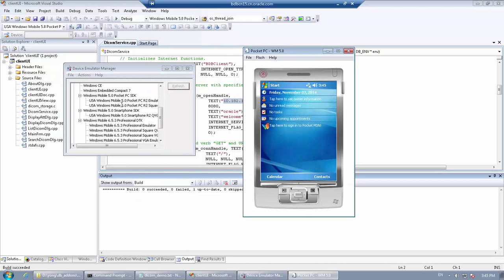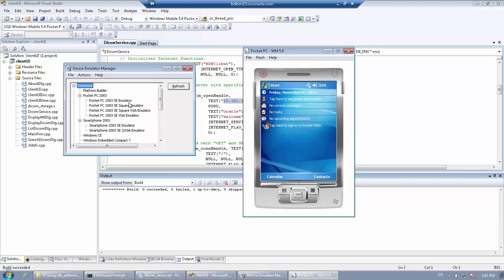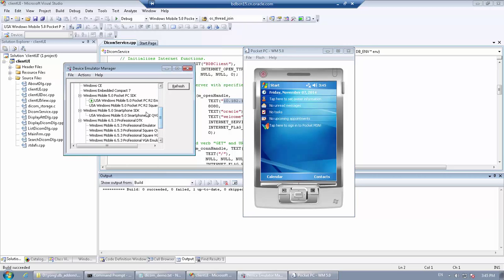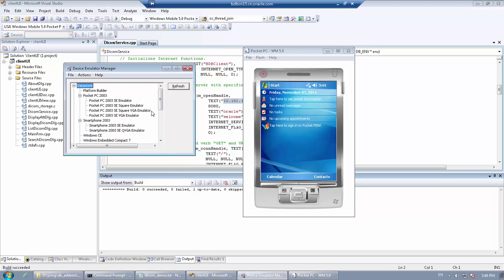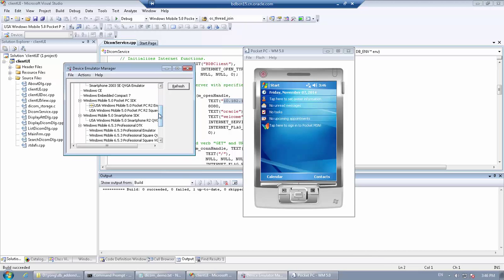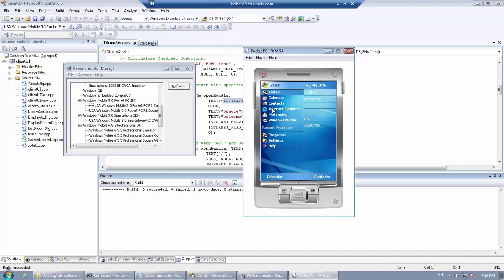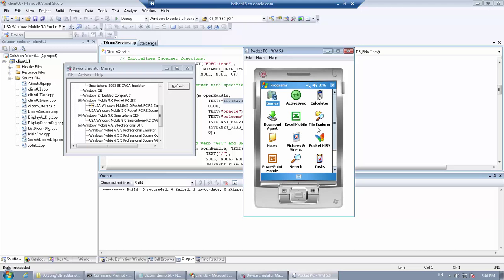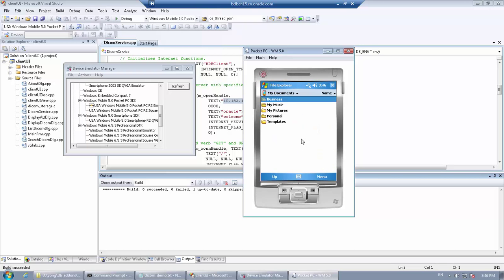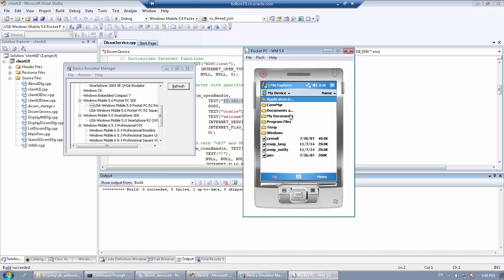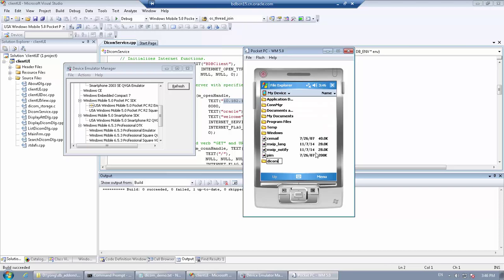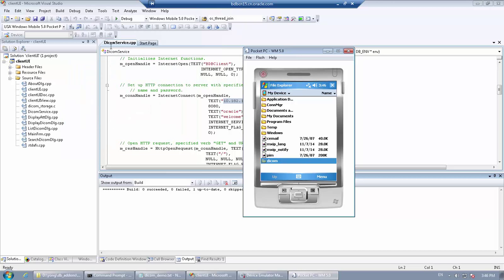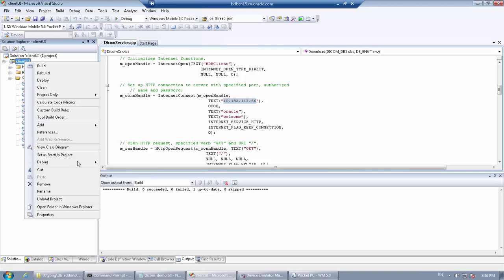And create a DICOM folder under the root directory. Start the client program.